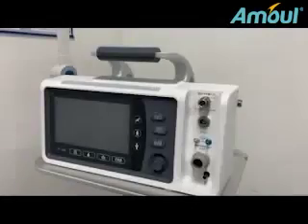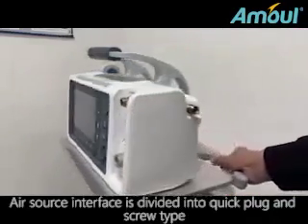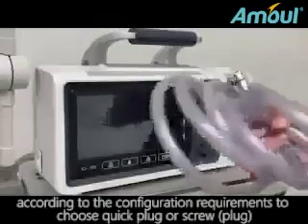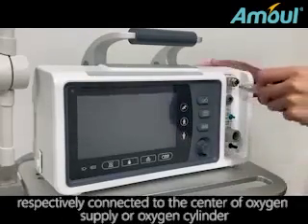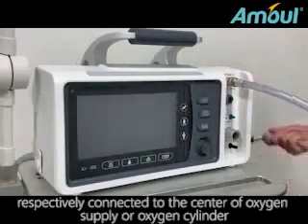Alarm light. The air source interface is divided into quick plug and screw type. According to the configuration requirements, choose quick plug or screw plug, respectively connected to the center of oxygen supply or oxygen cylinder.